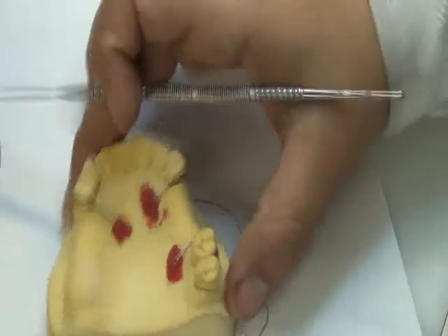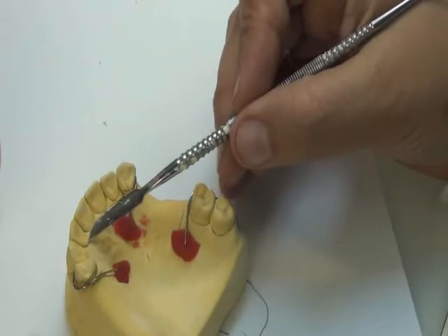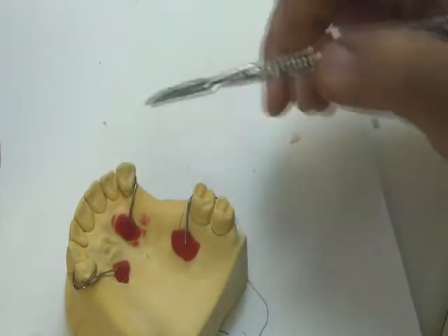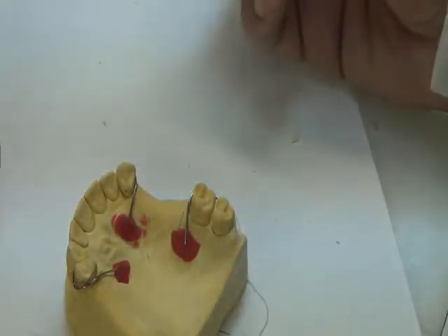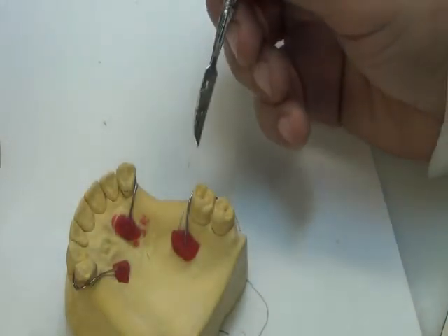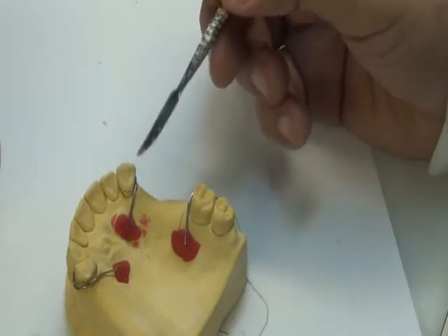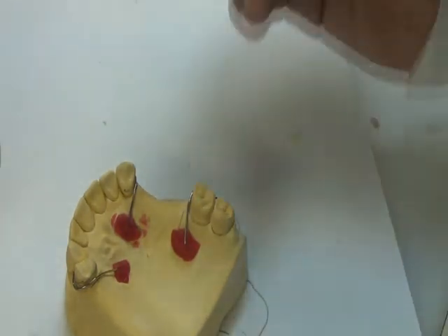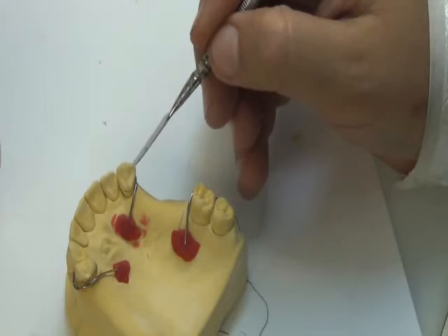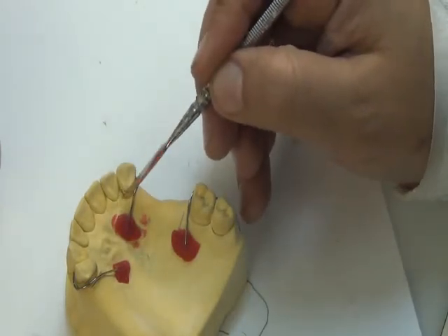Actually, before the wax-up, we also block the other gingival margins if my major connector is going there. Okay? So let us talk about the extensions of the major connector. For the banded saddle, the rule is the following. Wherever I have a clasp on a tooth, I should have part of the acryl lingually or palatally on this tooth.